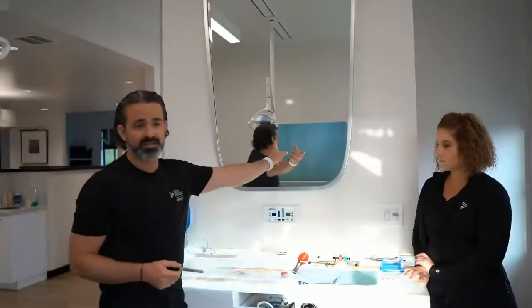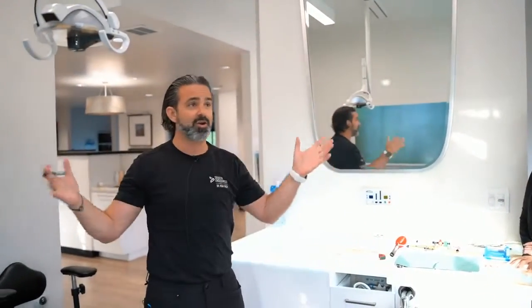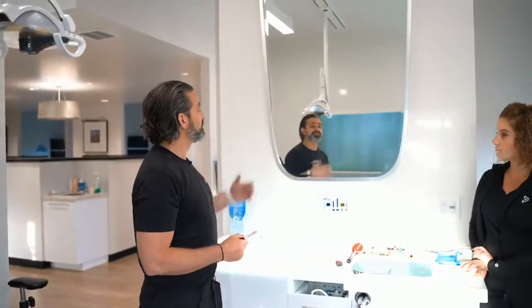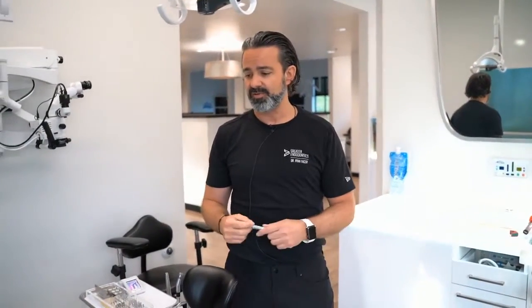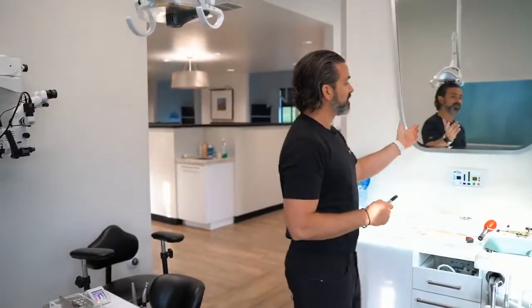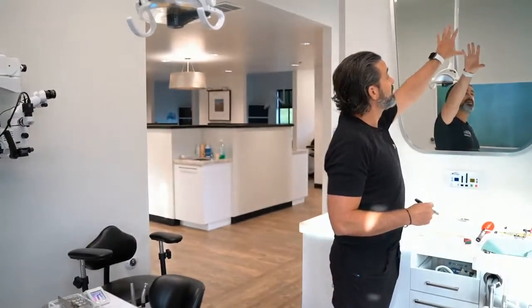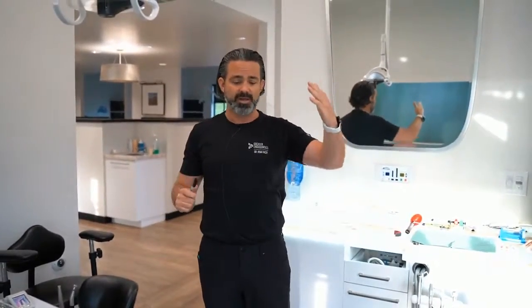I've also done it behind the patient's head, the 12 o'clock position. And that also creates a very open feel. Now, the advantage of 12 o'clock is it doesn't matter if you're right or left-handed, and I'll show you what that means in a minute with positioning around the chair. But the problem with 12 o'clock is when you mount a microscope here, the arm has got to come somewhere. And so, Lindsay, do you want to sit right here? Or just stand right here?